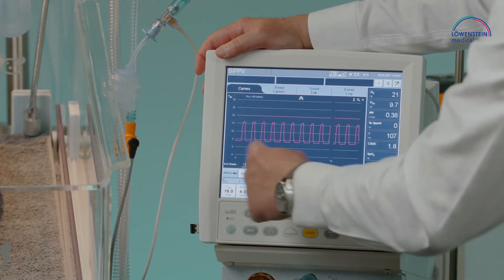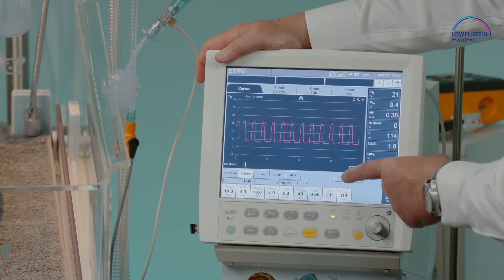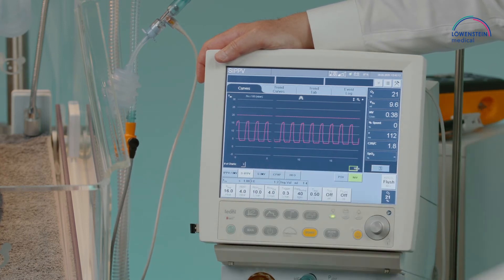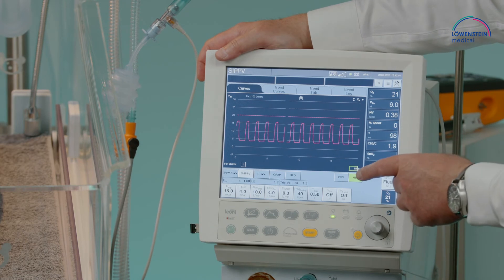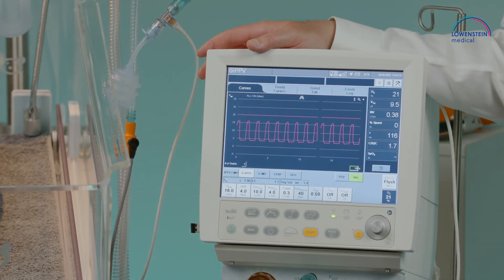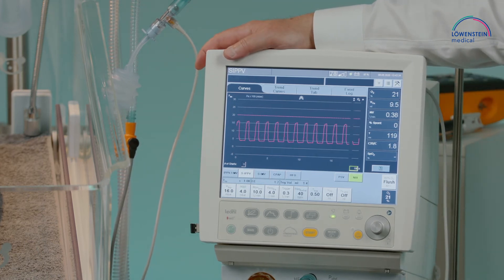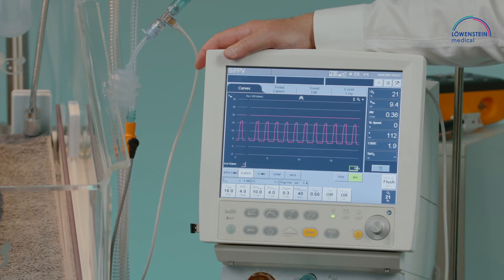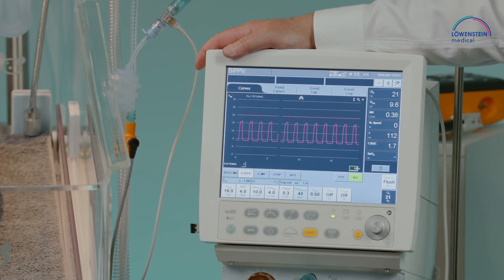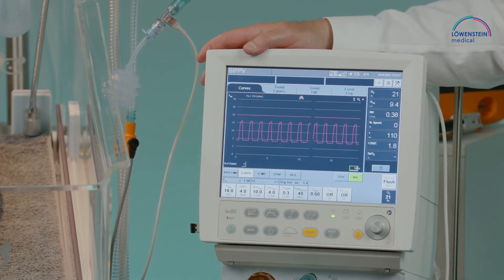We have selection from different ventilation modes. We can add profile PSV to SIPPV and SIMV ventilation modes, and we can switch directly over to NIV. Switchover means we are not interrupting the ventilation — we are able to change over into non-invasive ventilation. Once the patient is prepared, we can directly start non-invasive ventilation by pre-selecting the ventilation mode.